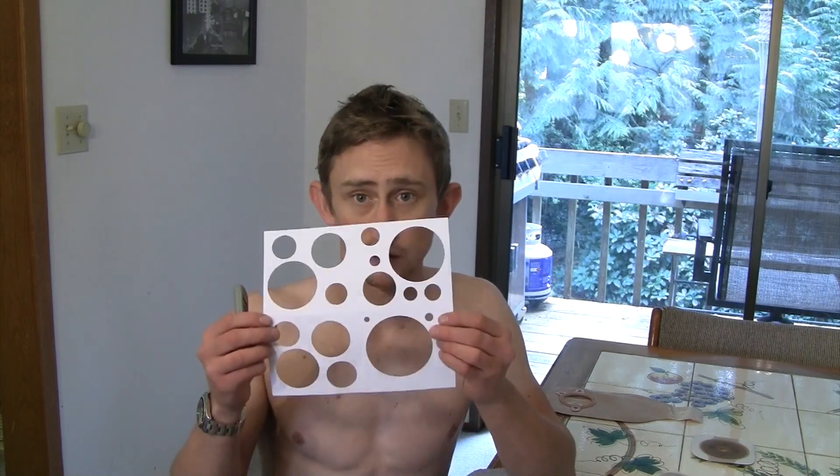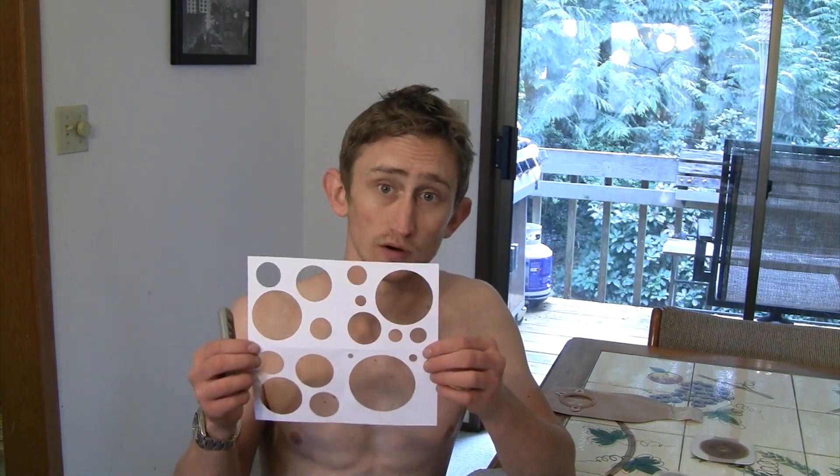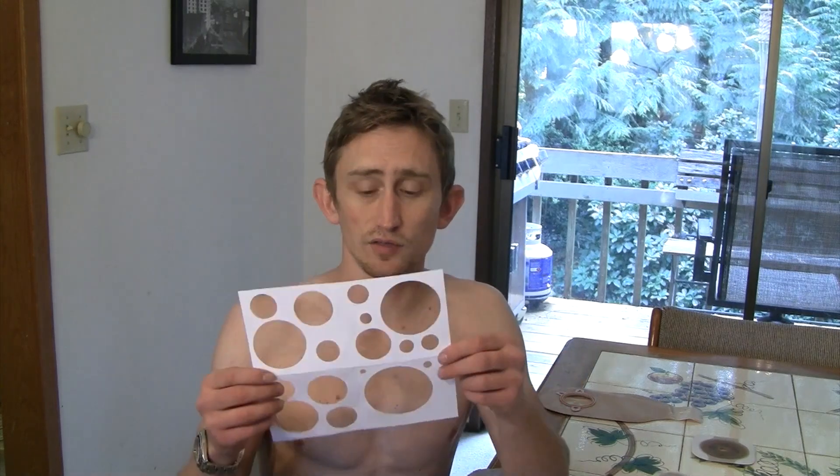It's about how to measure your wafer for your stoma, and the importance of that comes down to a few really important reasons. I actually had no idea about one of them, and I was causing damage to my stoma itself.